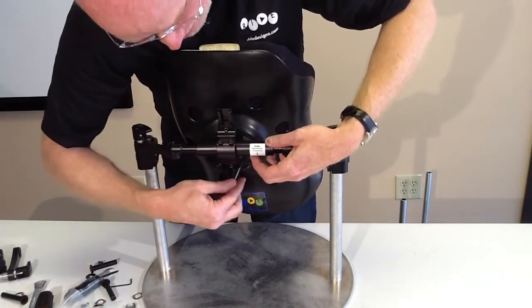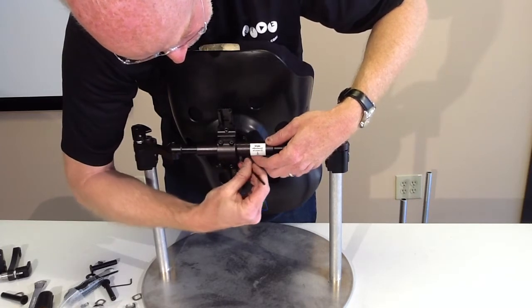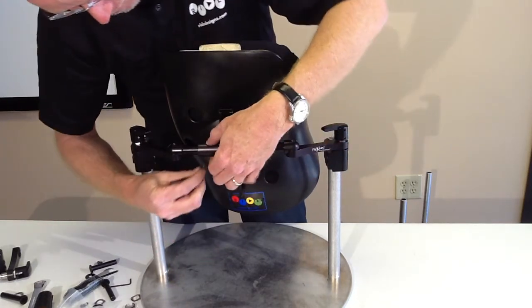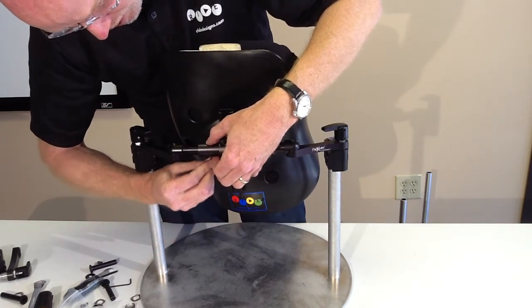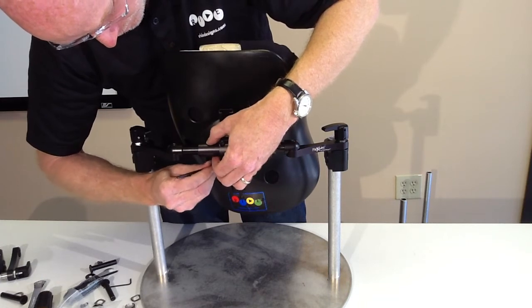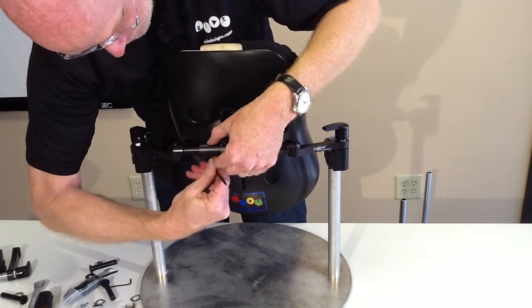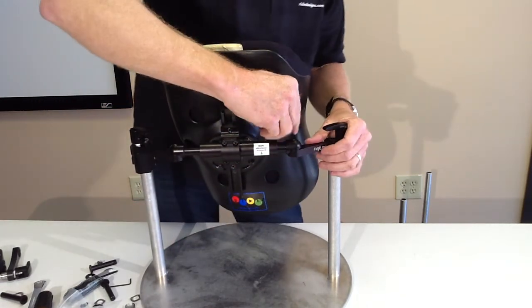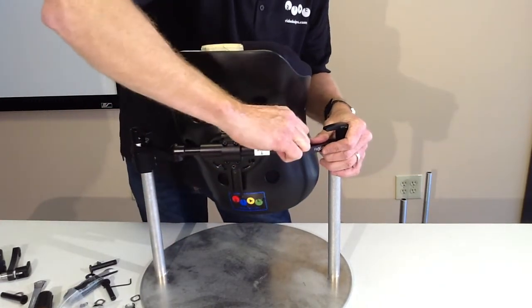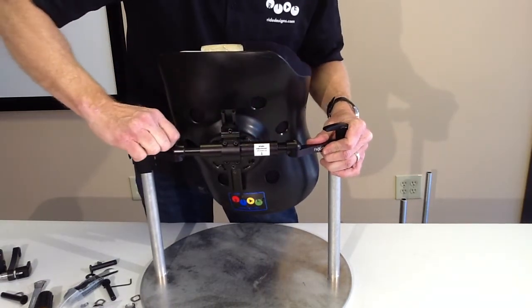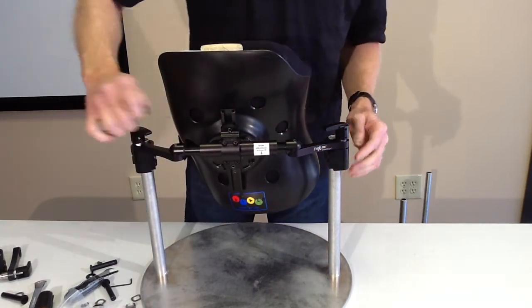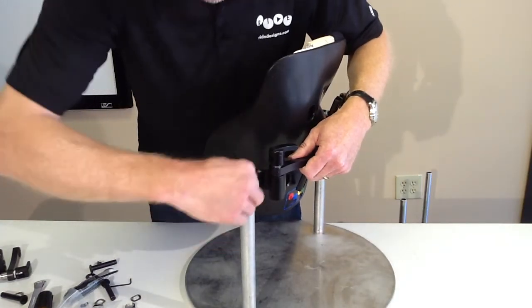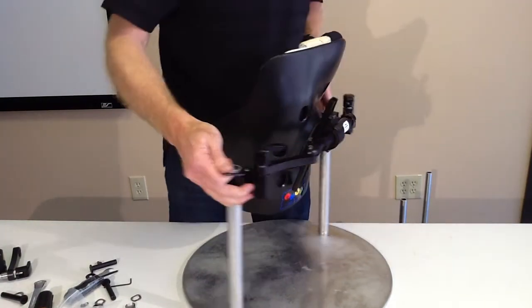I'm going to go to my width adjustment screws. Two of those. My pivot screws. I'm going to lean on those. And finally, I'm going to go out, double check, make sure that my clamps are tightened down really well, too.